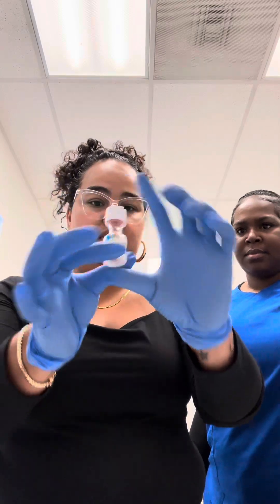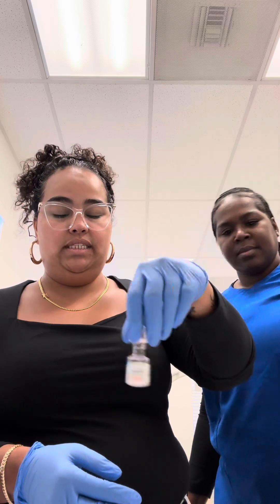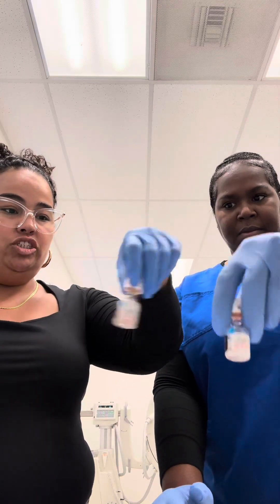When you do this, just squeeze it and the little stopper inside goes in, then you invert. Make sure that all the medication is mixed in there — don't go shaking your vial. Go ahead, bring it in and just push it through, like you're crushing the vial all the way through. Keep pushing until you feel that push, then the little stopper goes in. Make sure you shake it all up.